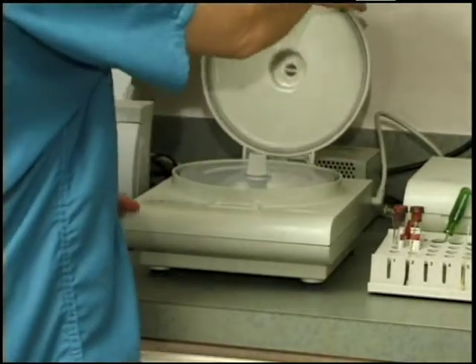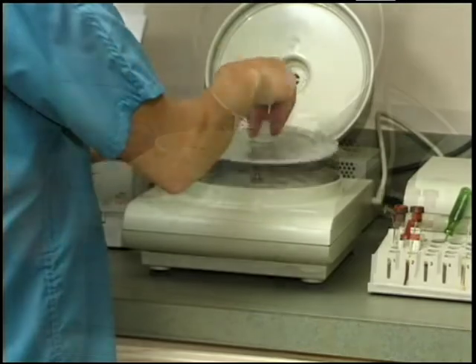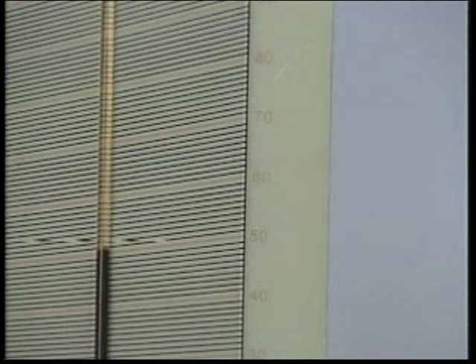Hydration is measured in a very similar manner as specific gravity. The blood sample collected in a hematocrit tube is spun down in a microcentrifuge. The plasma portion is the clear fluid remaining above the red blood cells. After the packed cell volume is read and recorded, we are ready to evaluate the protein concentration.